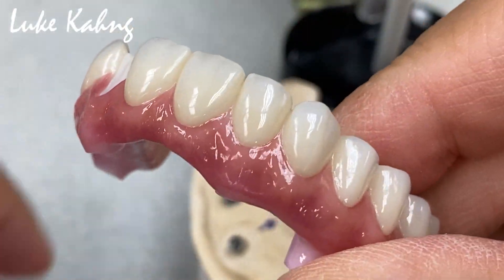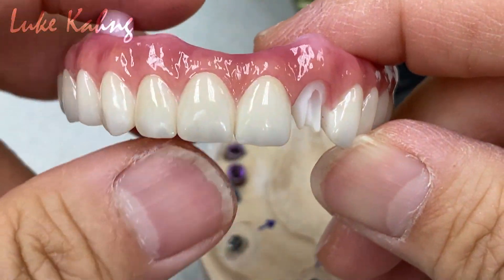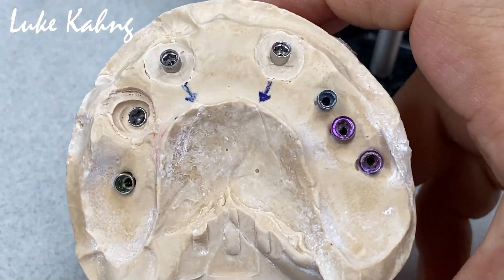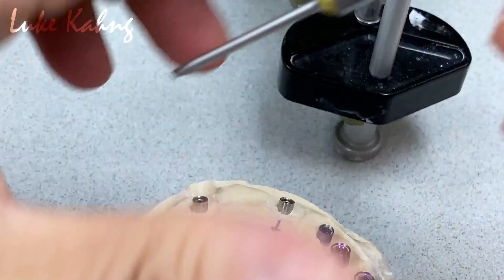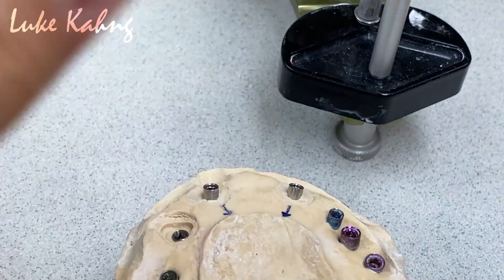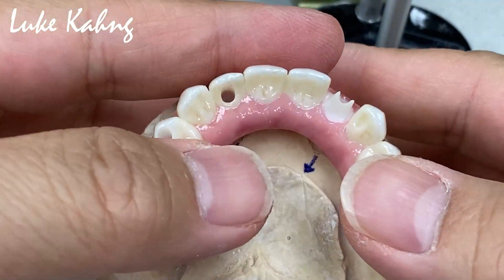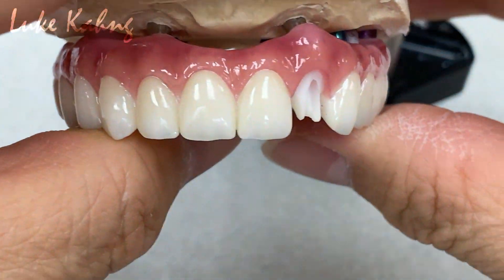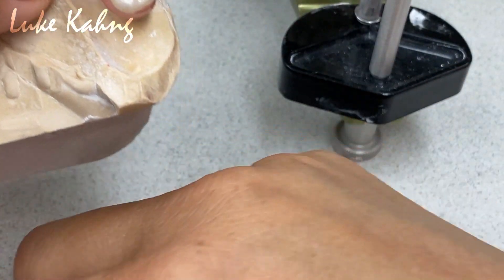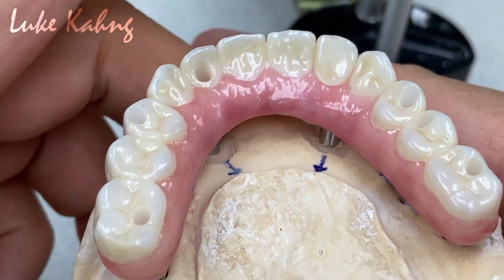As you saw, all our procedure and the build-up — after milled and cut it, the whole structure is monolithic. The problem is the two implants indicated at seven and ten, which is multiple implants, which is great. But the position is towards the facial, which is the main issue. So we made the angled channel access, bringing it in lingually. The other one we cannot — it's too much. We finished the restorations with the monolithic, and also finished one single crown, same thing as monolithic restorations.